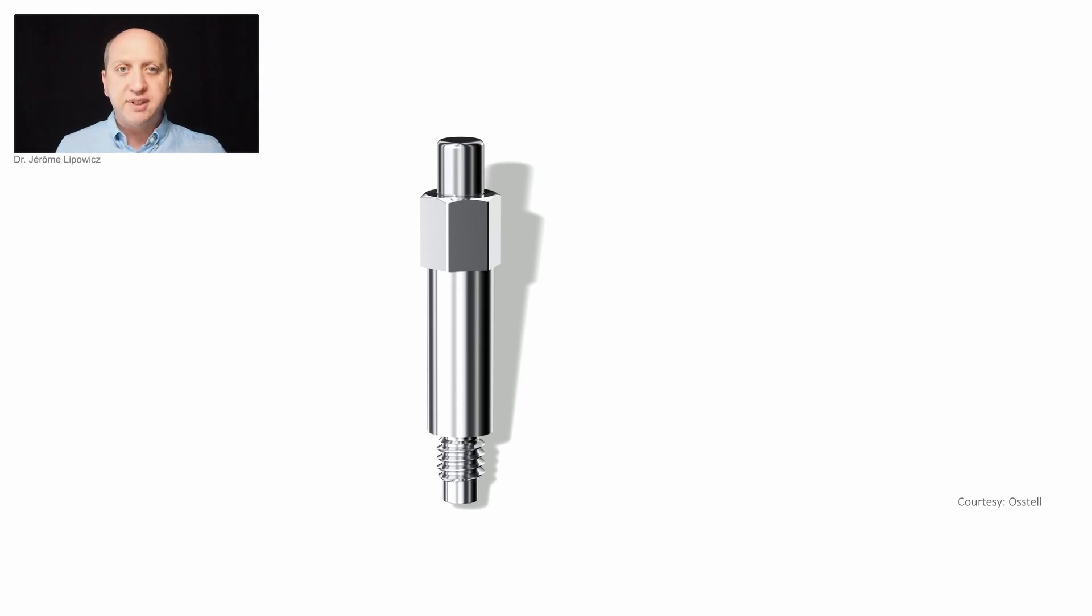It's very small, very tiny. There are multiple variants to adapt each system, each implant system, each implant diameter, each prosthetic platform and some of them are compatible with multiple implants.